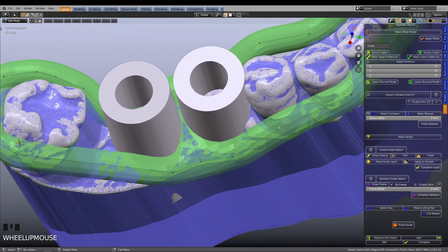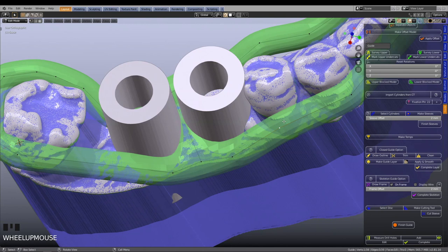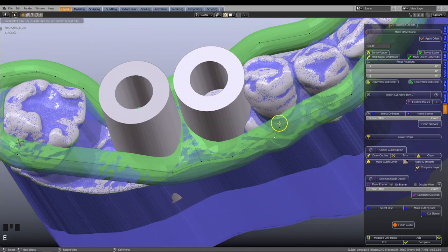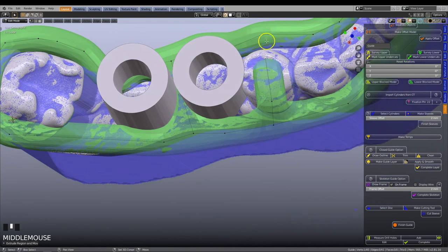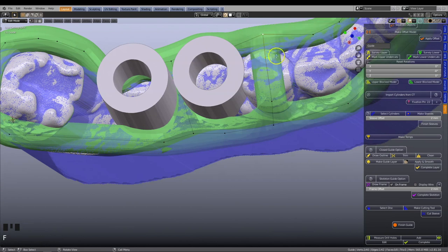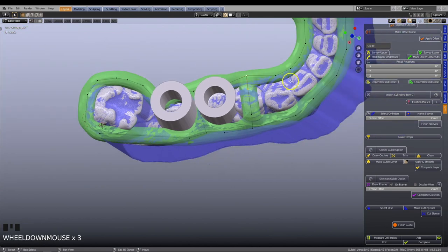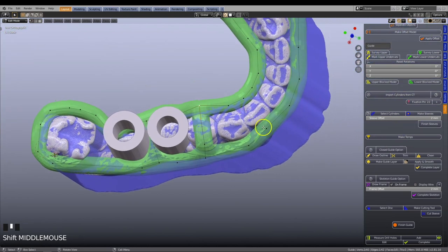Likewise here, we can move over the occlusal surface. Select this vertex, then press E to extrude. Left click to set down the line. Shift left click the other side, then press F to fuse the line.